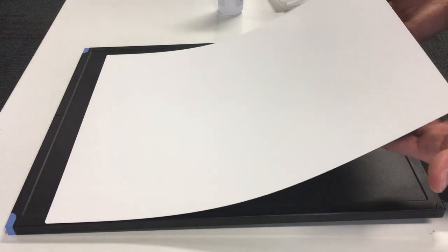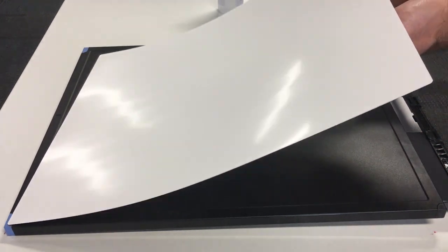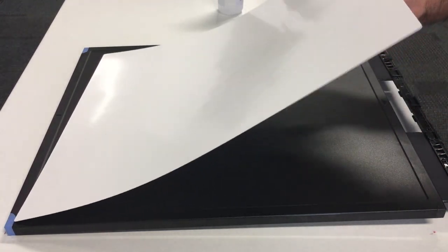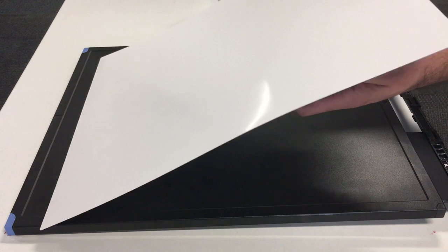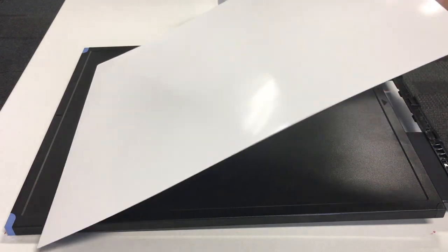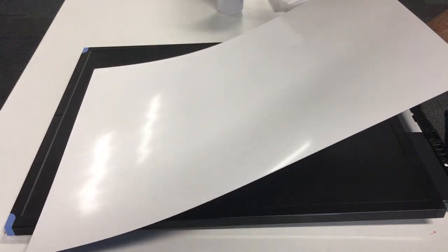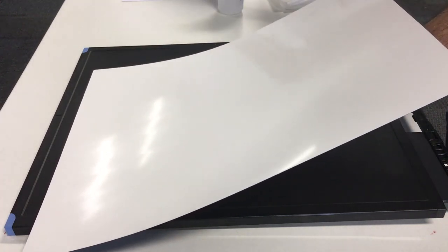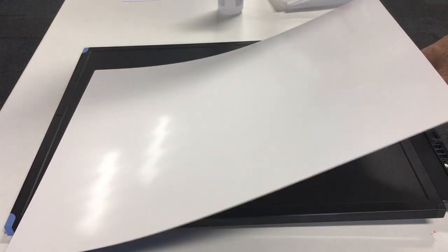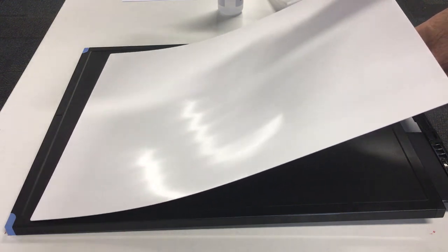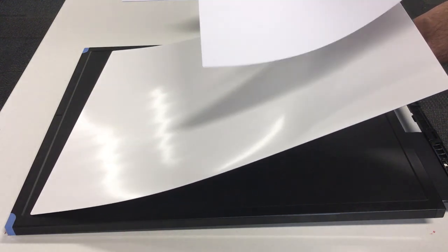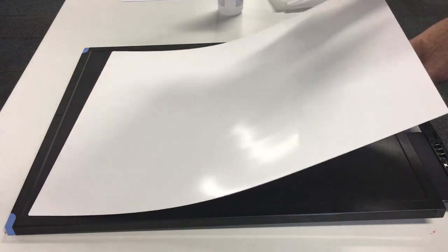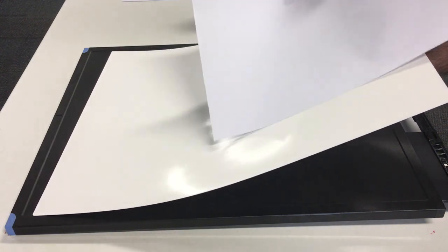And I can touch the back side of it. So the important part on this is, the blue side, you can touch it. But the front side, which is the white phosphor side, you shouldn't touch it.